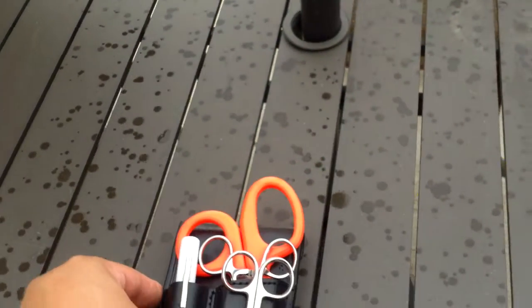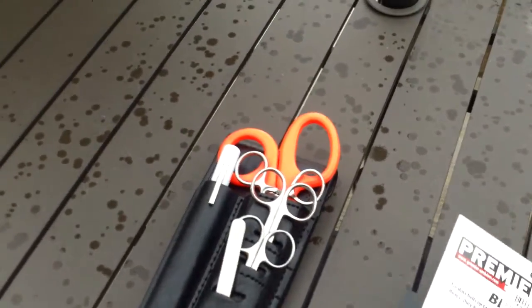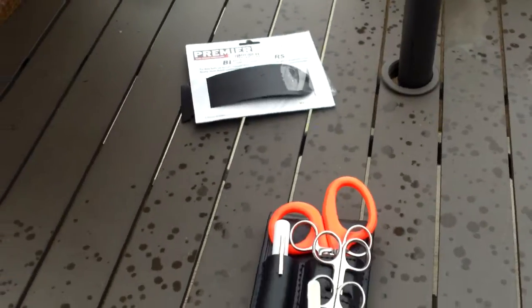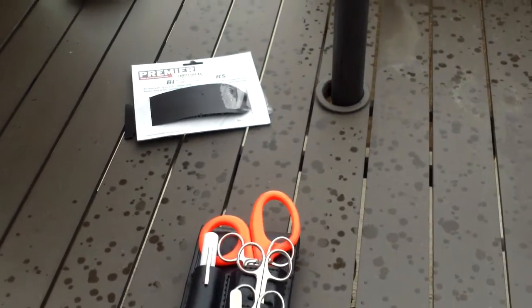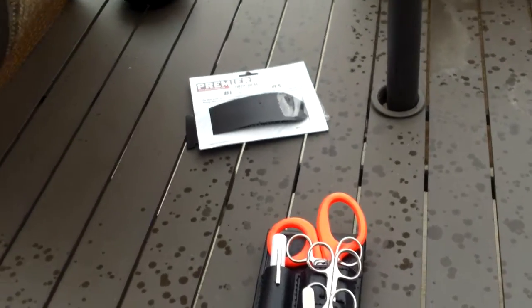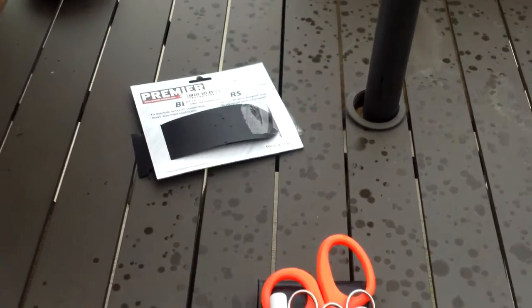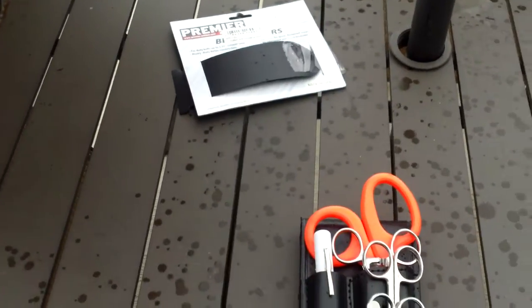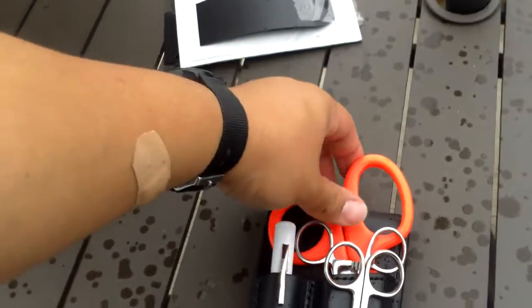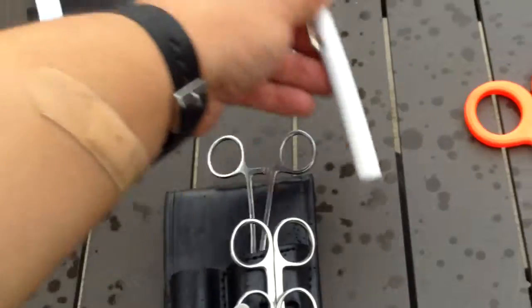Overall, I really like it. I think it definitely gives you good options. In the field, my experience is as a volunteer firefighter for almost four years, an EMT for almost two, working a year on the ambulance and a year in the ER. Personally, the only thing I've ever used the most was just the trauma shears and the pen light.